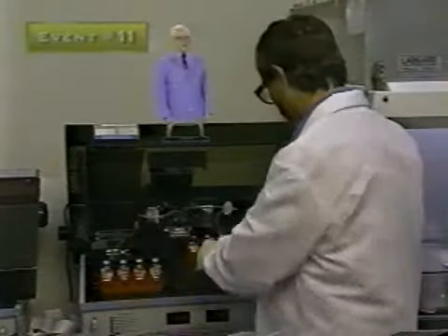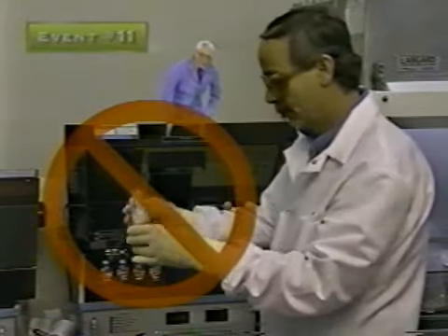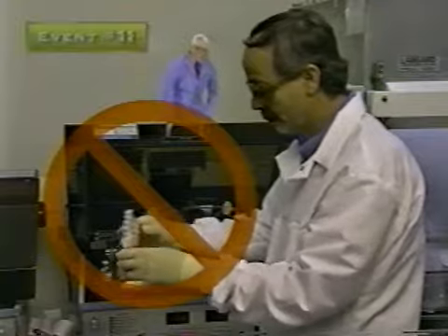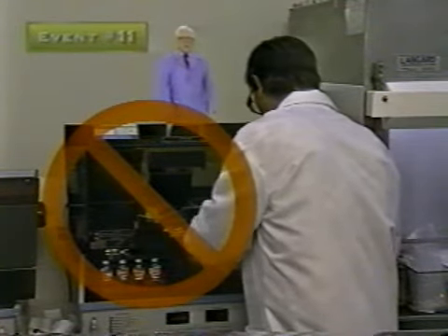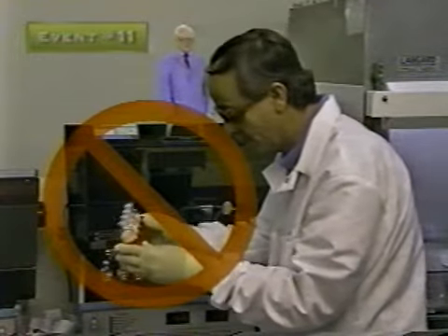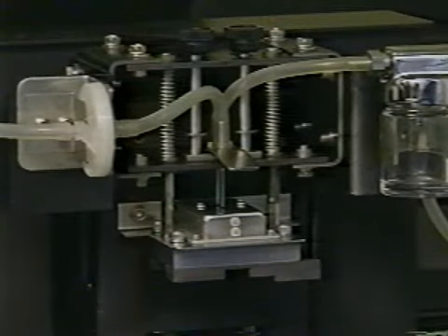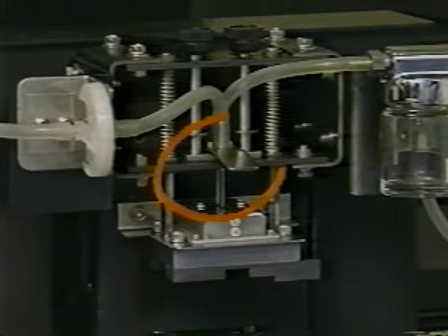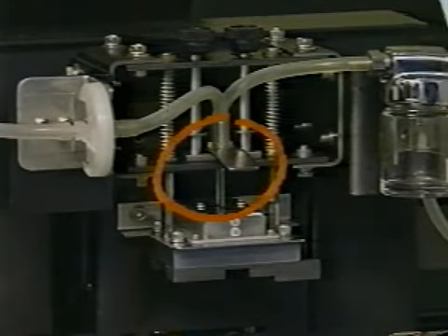Look at this. Careful handling of the inoculated Bactec bottles prior to testing is critical. Avoid contaminating the underside of the septum with a culture medium that may contain infectious organisms. Contamination of the septum can transfer contaminants to the sampling needles, which may then contaminate other cultures.